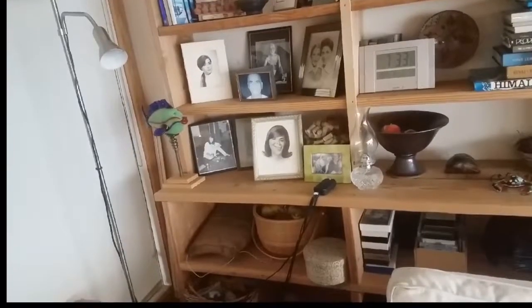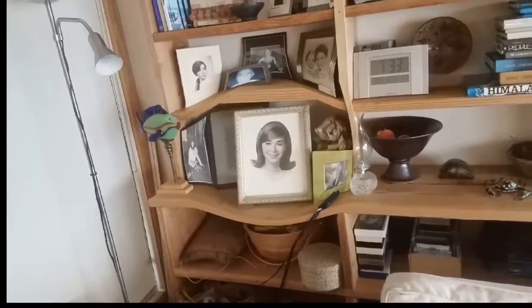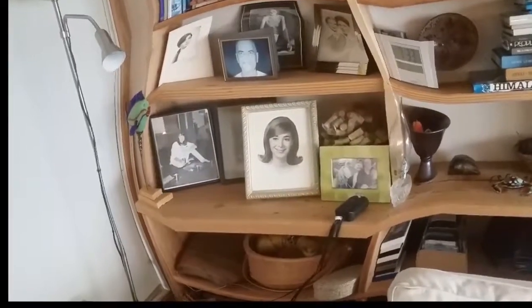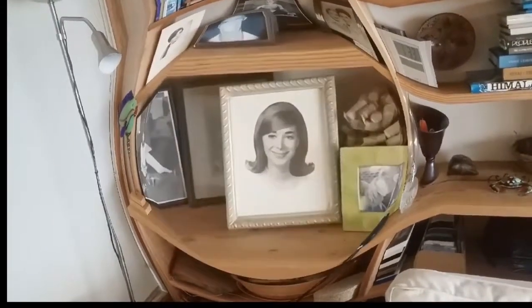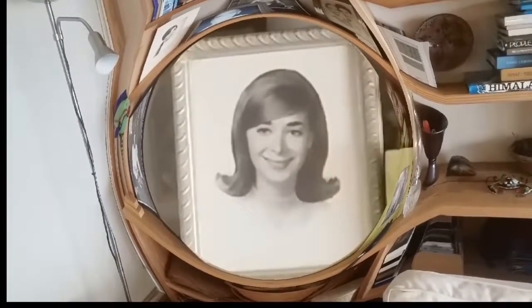These and many other household images can be made available to you using IrisVision. Thank you.